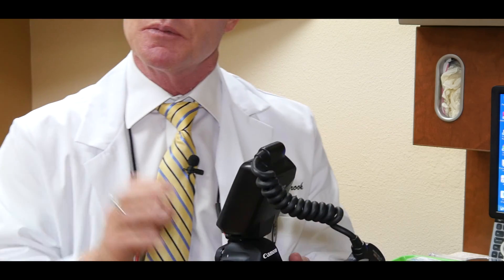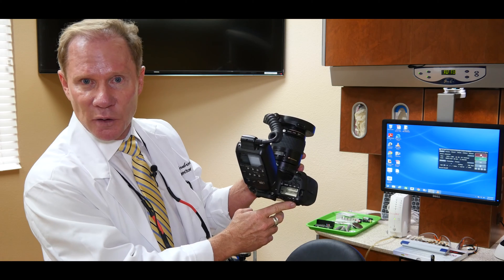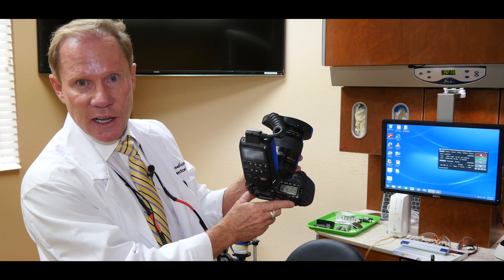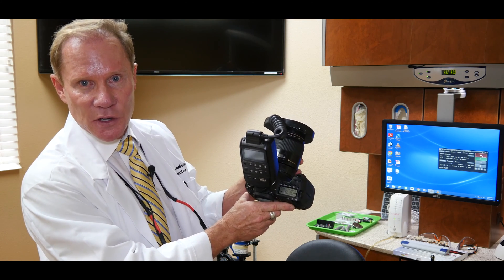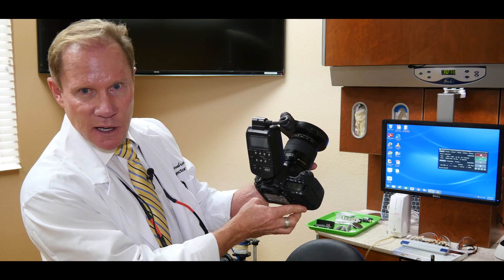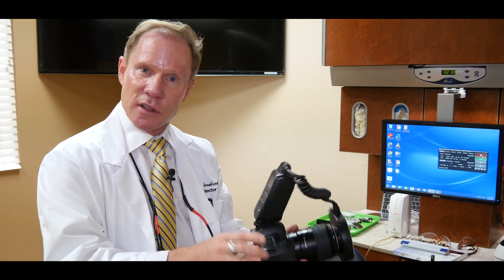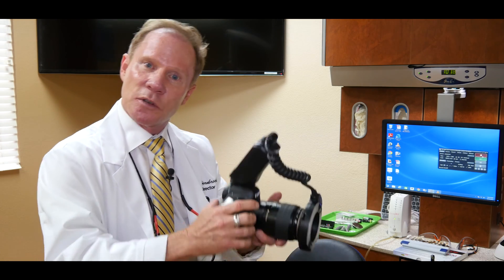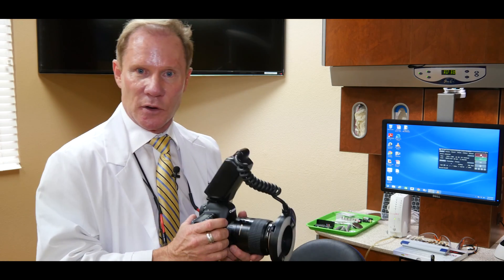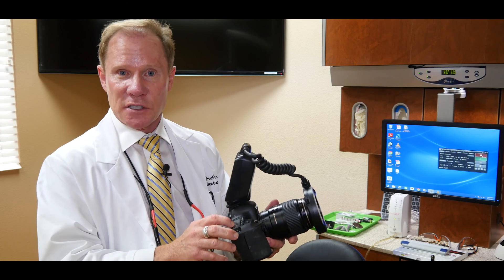Most cameras will have a maximum f-stop of 32 — some will be 29, but most are 32. So most of our dental photos we're going to take at f-stop 32, and you can see how easy that was to change. I want to look down and make sure it's 32 before I go take my photo.